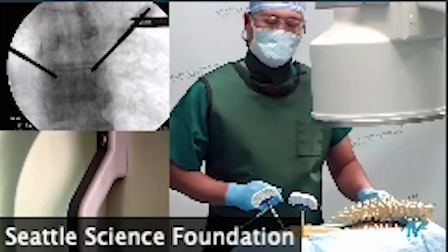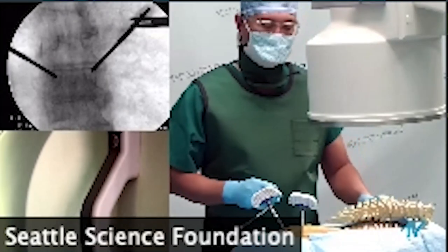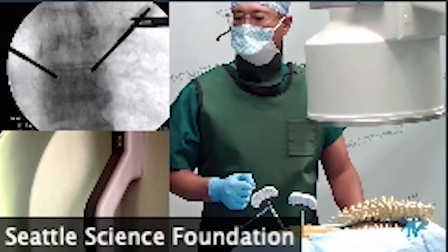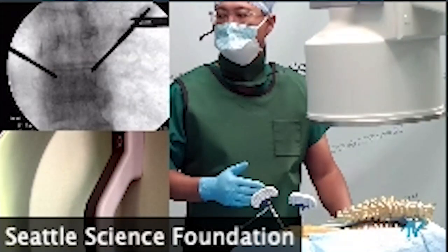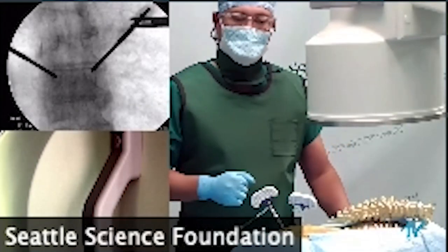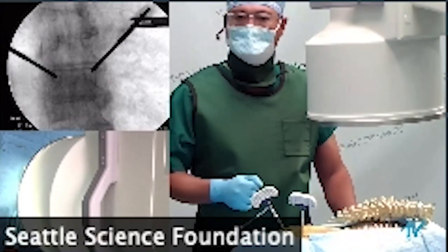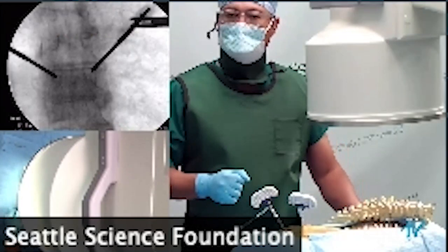Today we're going to be going over some of the pearls for thoracic kyphoplasty, but also go over some of the technology for tumor ablation. Tumor ablation can be helpful to some of these patients with metastatic spread to the spine, looking at when radiation is not taking care of the pain. After radiation, when we're trying to get at these tumors and lytic lesions inside the vertebral bodies, the radiation has hardened the bone, making it difficult to get into the area. But for some more isolated lytic lesions or metastases, tumor ablation may be of a lot of help, and in conjunction with kyphoplasty can be quite helpful to contain cement, which provides some support and scaffolding to the vertebral body.